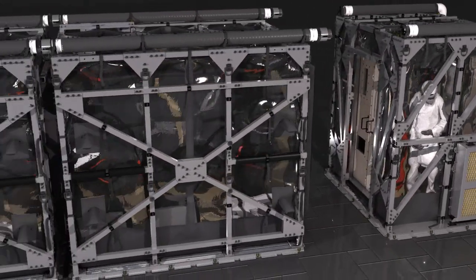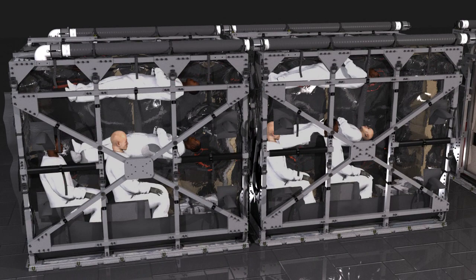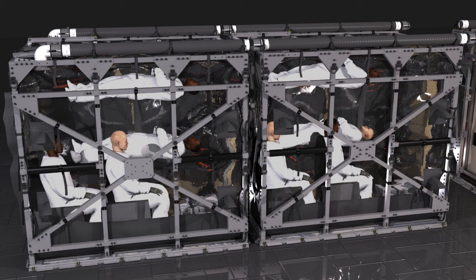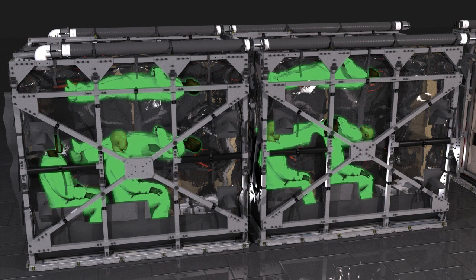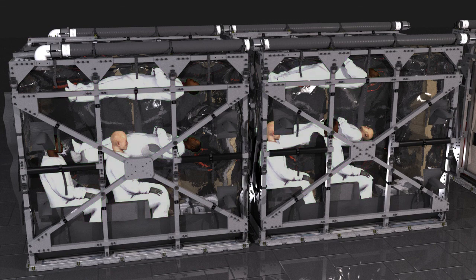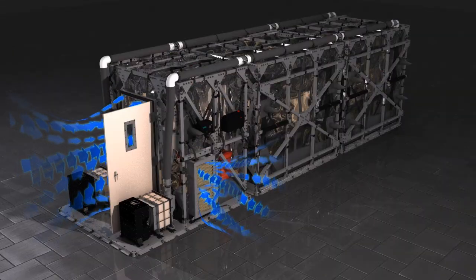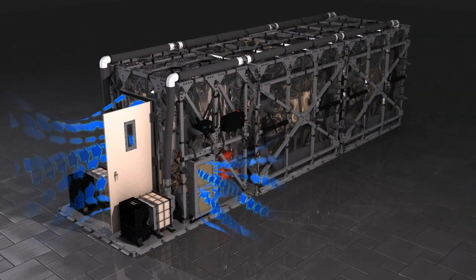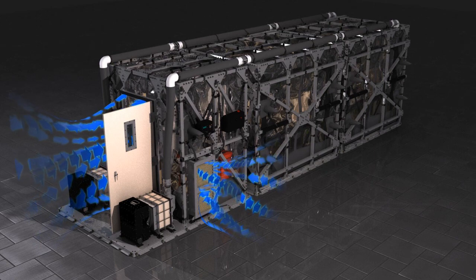The isolation modules are used to accommodate and care for patients with Ebola or other infectious diseases. The two isolation modules can be configured to accommodate up to eight ambulatory or litter patients based on the mission requirement. The filtration system maintains a negative interior pressure to prevent the escape of airborne and infectious agents from inside the TIS.